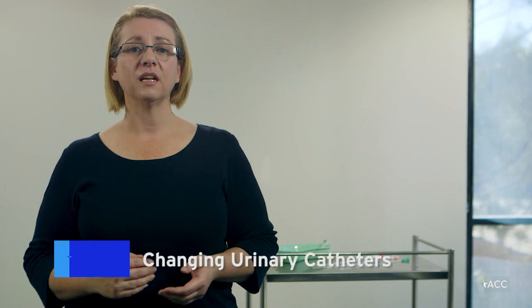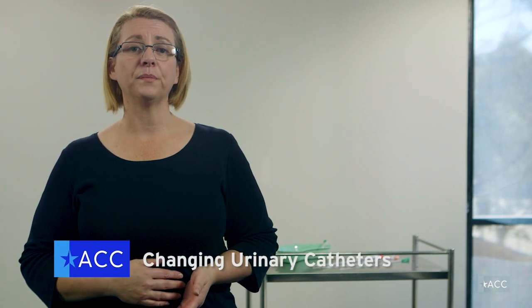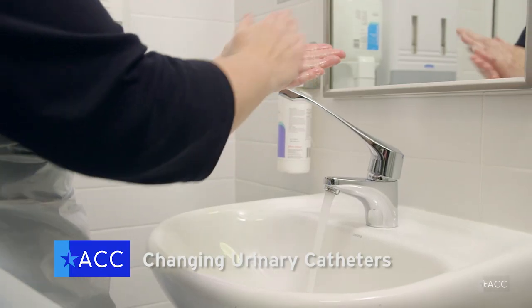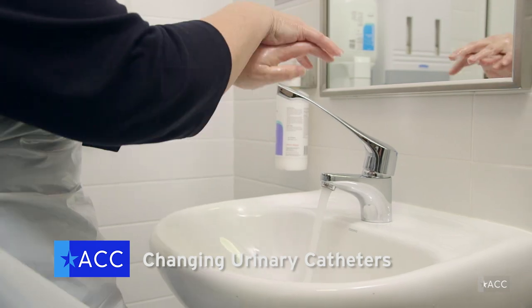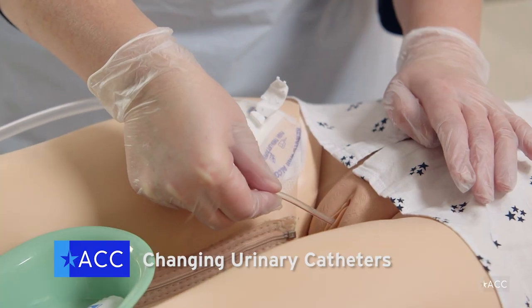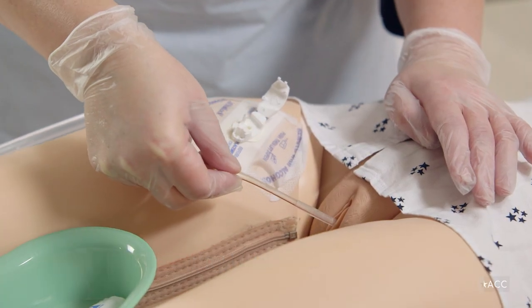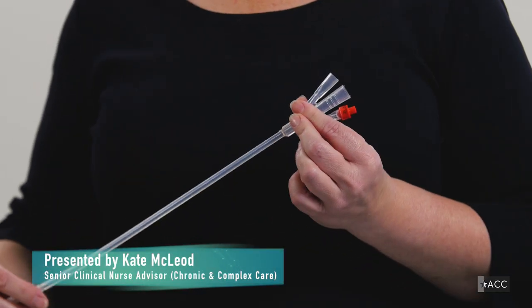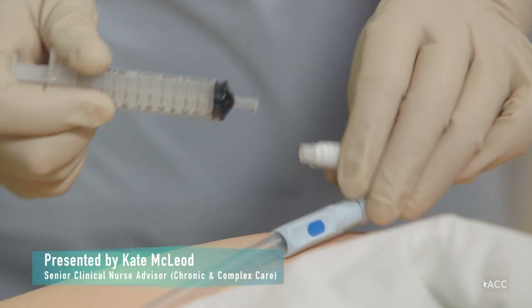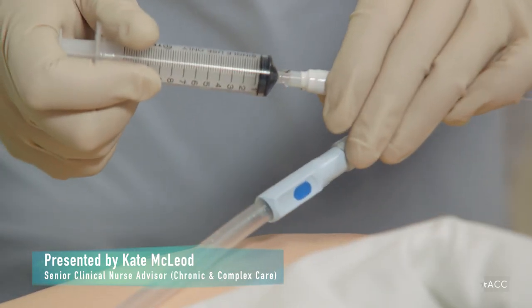Catheterisation allows urine to drain freely from the bladder for collection. In your role, you may be required to change urinary catheters, but in order to do this you need appropriate knowledge of the types of catheters and routes of catheterisation.